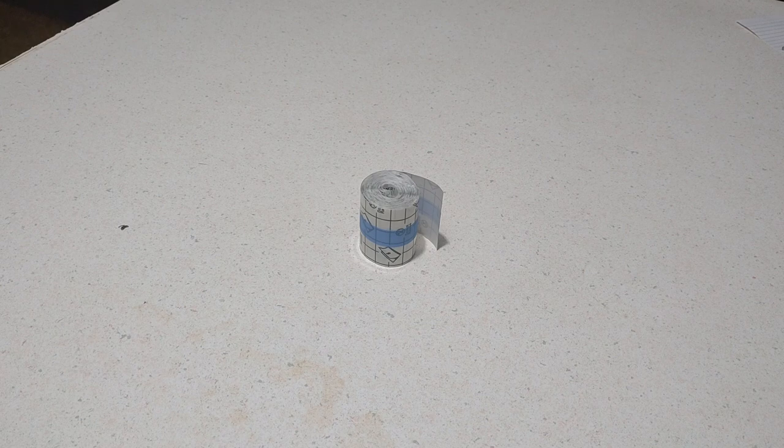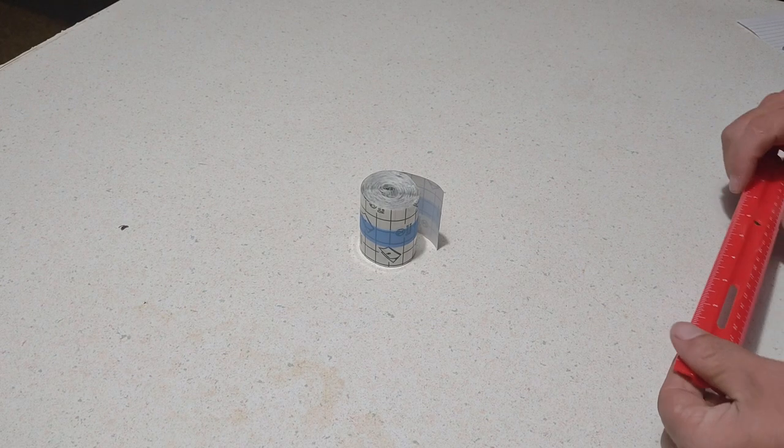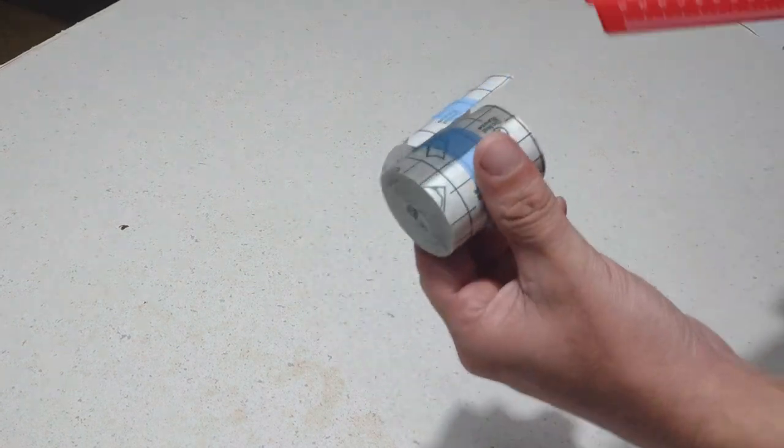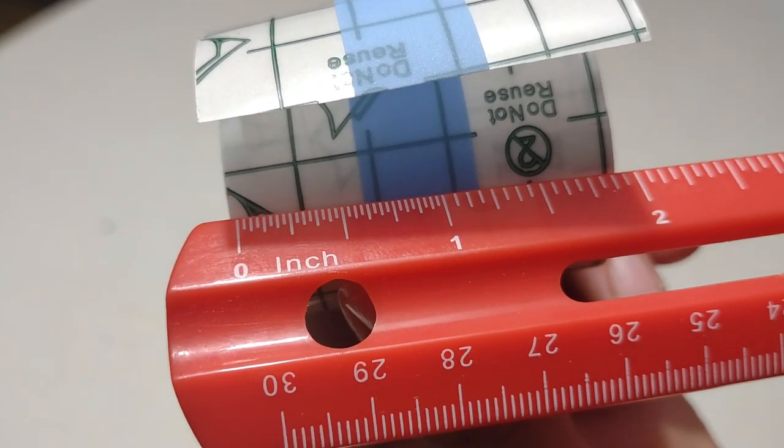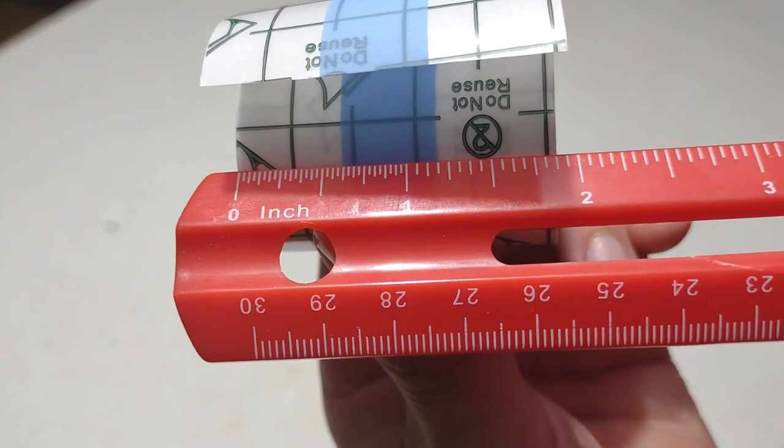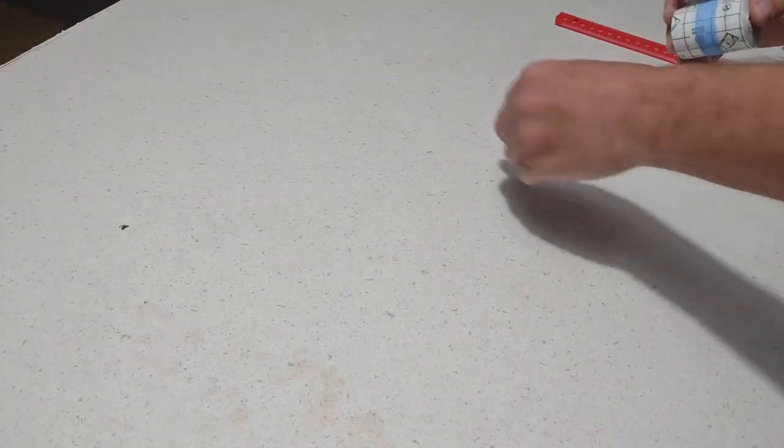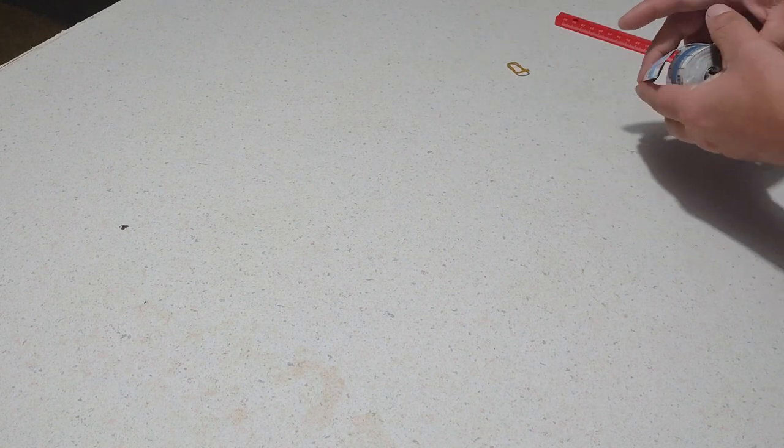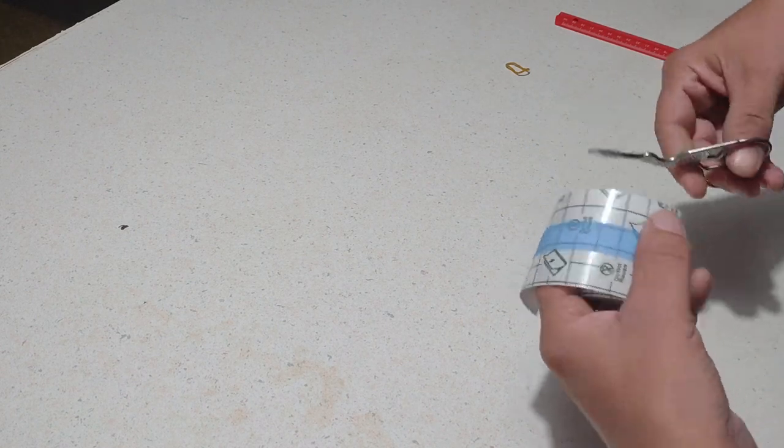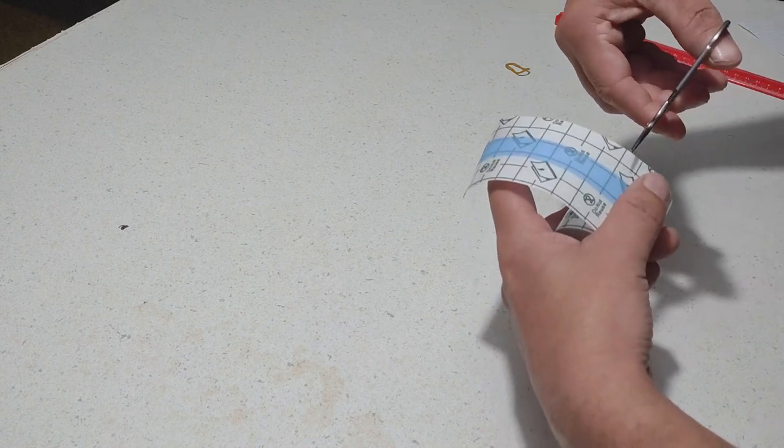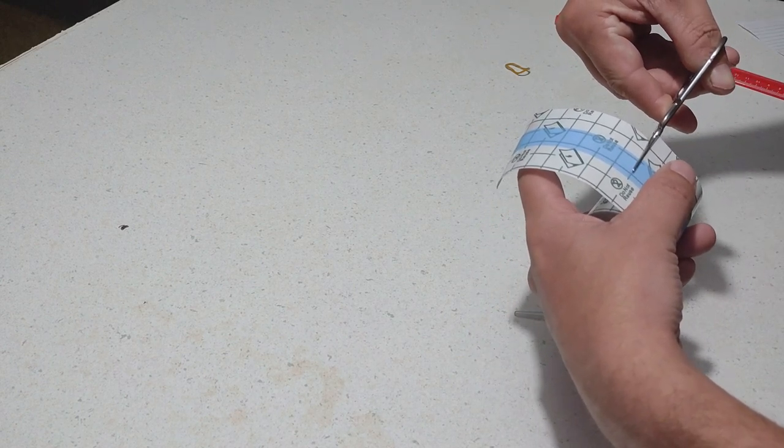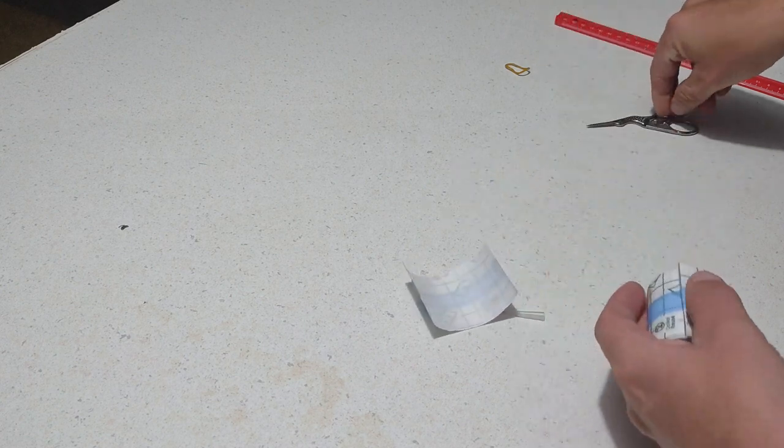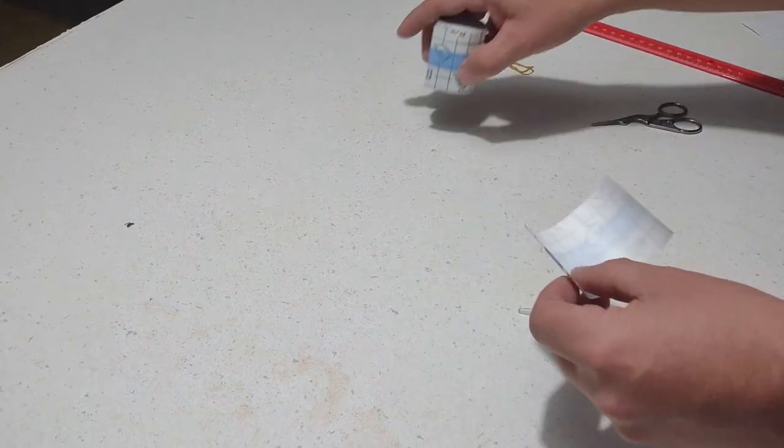Here we have P.U. medical tape, two inches wide. I like to use this when I can't sanitize the wound at work. I have to keep working just so I don't get stuff in it.